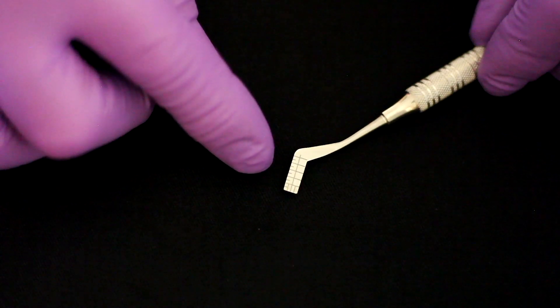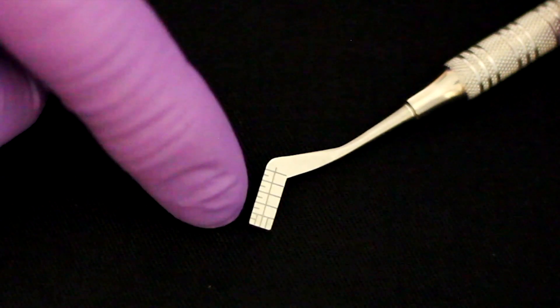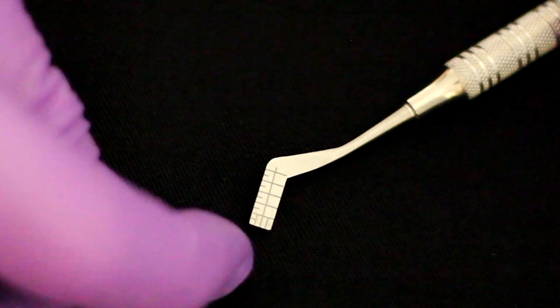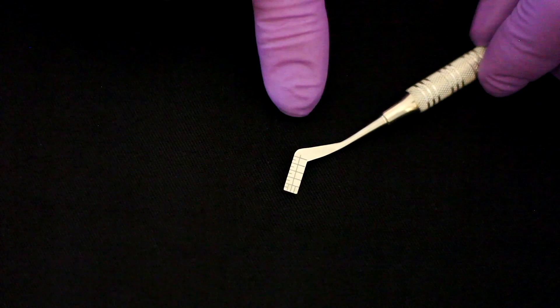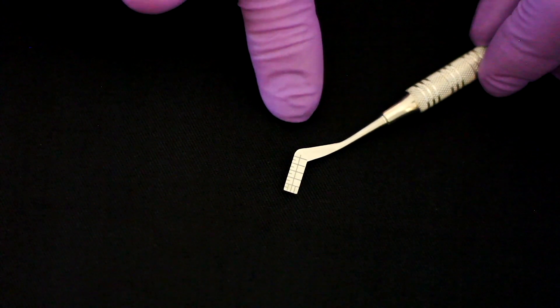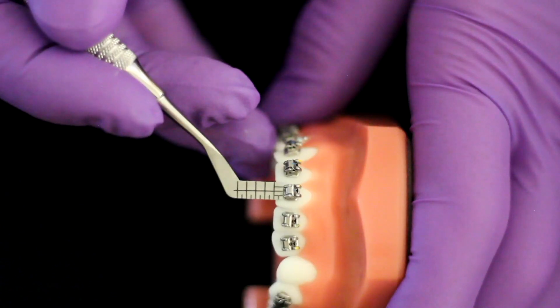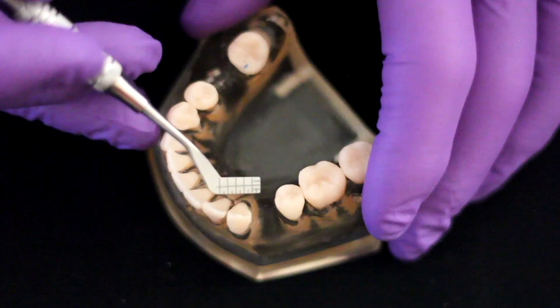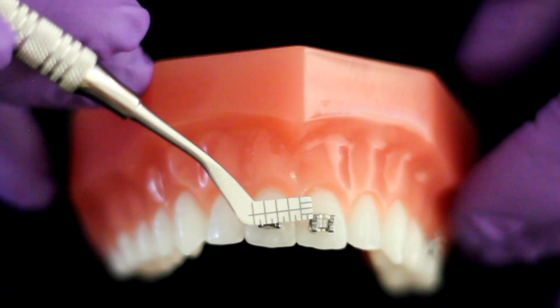If we look closer at the hockey end we can see that along the base there are 10 millimeter ruler markings and across the end are 4 millimeter ruler markings. This allows the operator to measure a variety of intraoral structures such as the overjet, the overbite, tooth tissue loss, contact displacement, gaps, and the position of the bracket on the tooth.